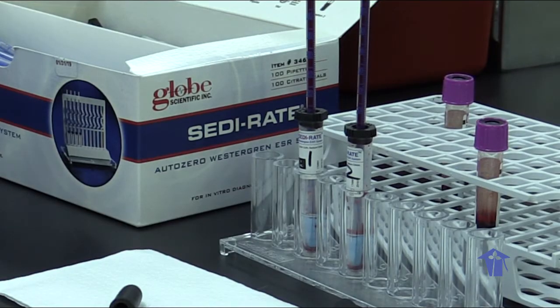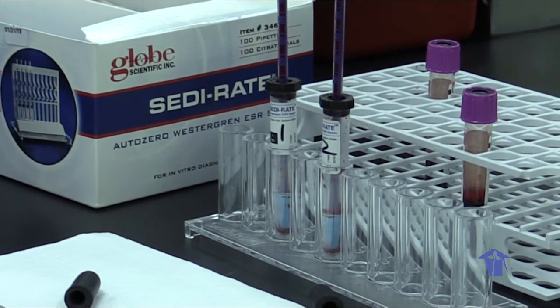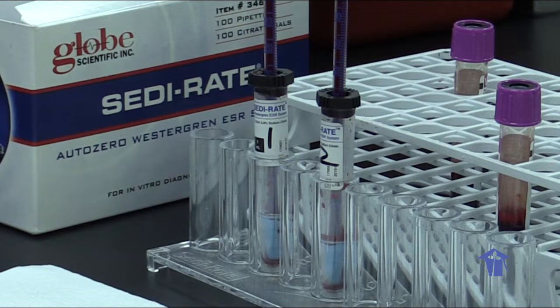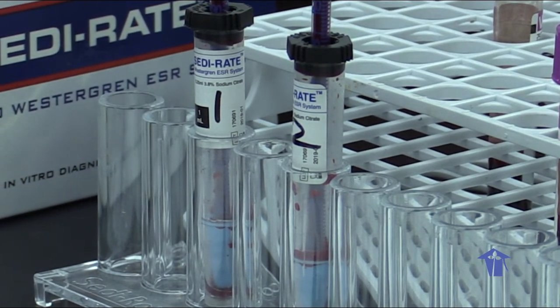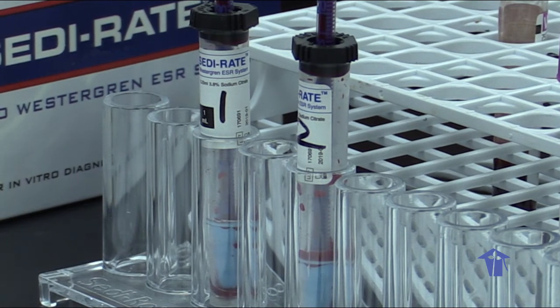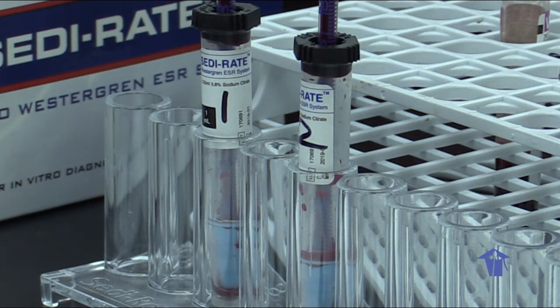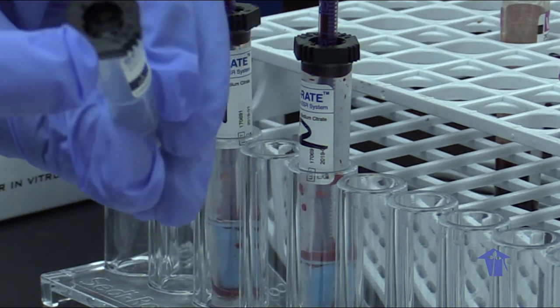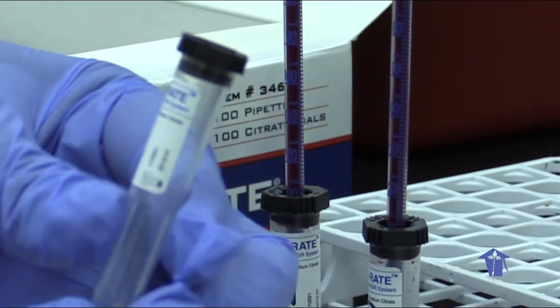Observe that the lab technician did not forcefully push the pipette down into the sample tubes. If you push it too aggressively down, the blood can come right up the pipette tubes and splash even in your face or the hands or on the counter and so on. So once you puncture the stopper of the tube, gently push it down into the sample. Don't aggressively push it down.